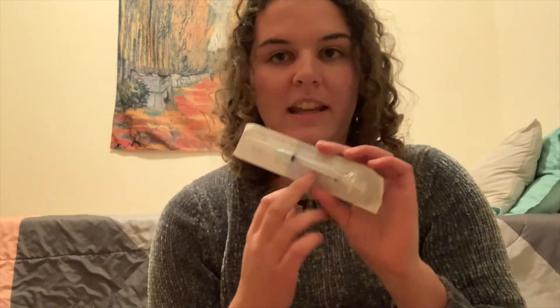You get a vial here — it's one milliliter. And then you also get your IM needle here that you use. Vitamin B12 is an IM injection, which means intramuscular, so it goes into your muscles like a vaccine would.